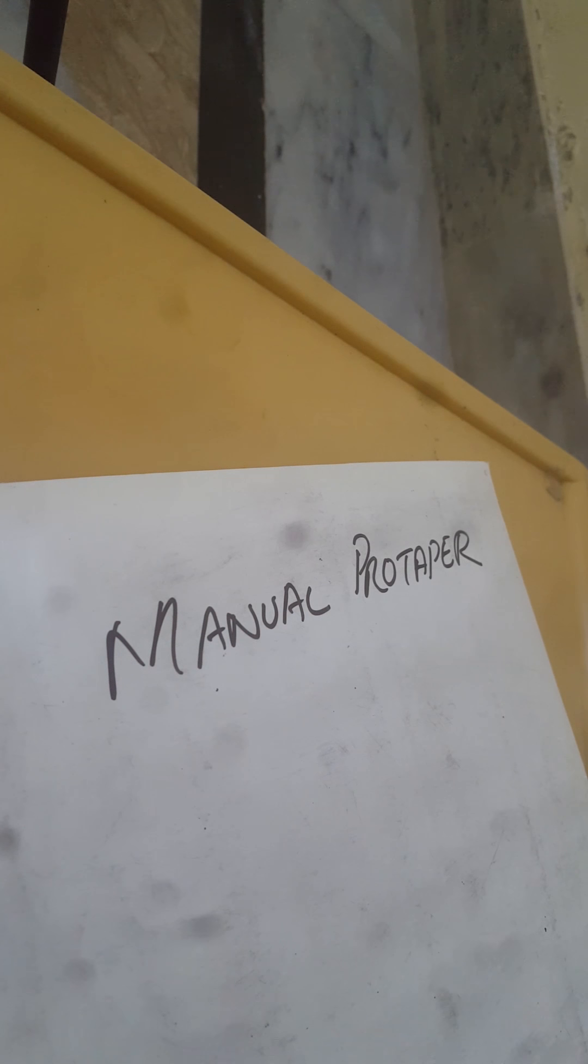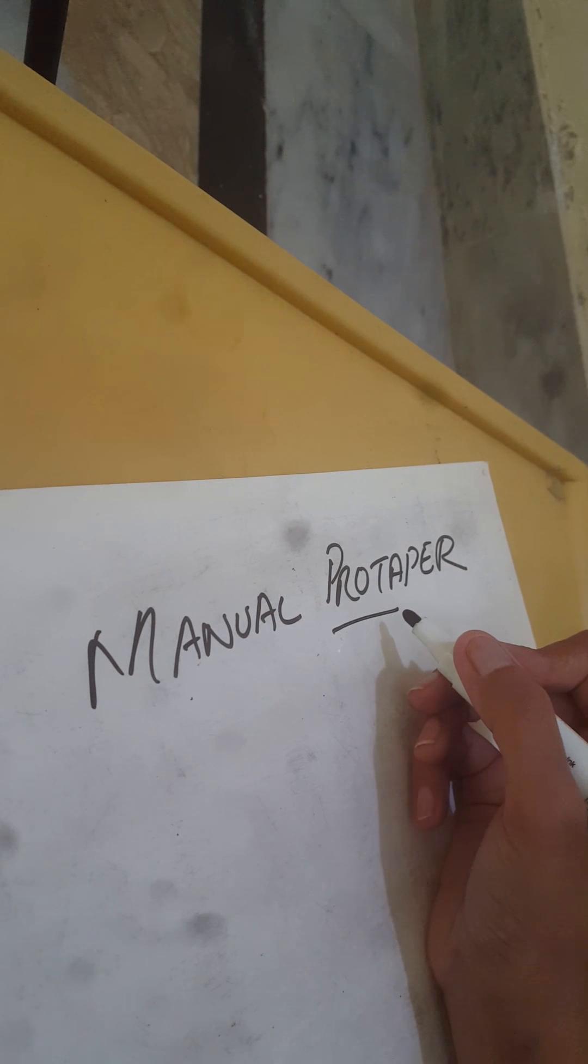Hi guys, today I am here with a very new video. Here I am discussing about manual protaper. We have different techniques by which we perform root canal treatments in our industry. One is the conventional one in which we use H files or K files, while the other is the protaper one.